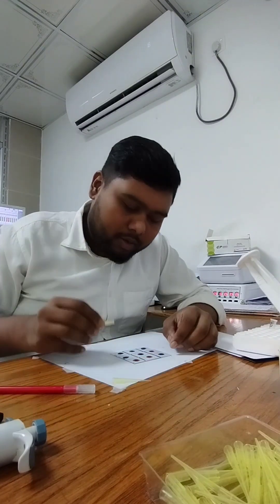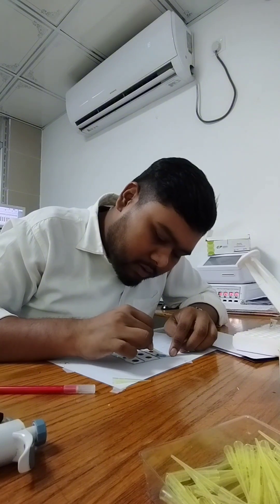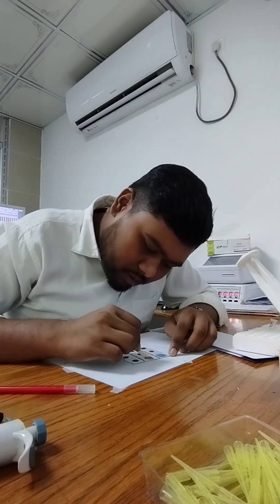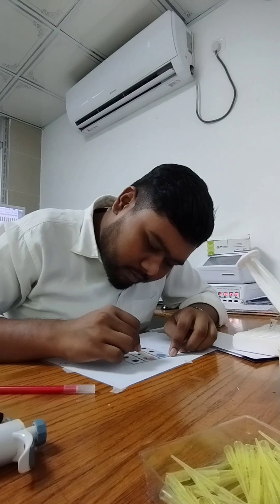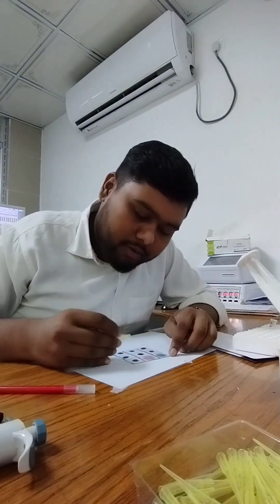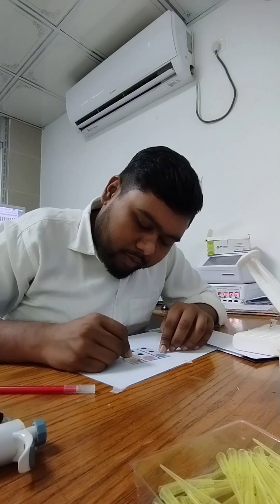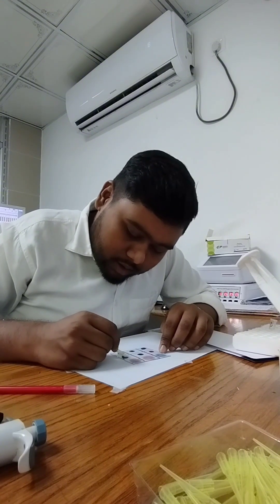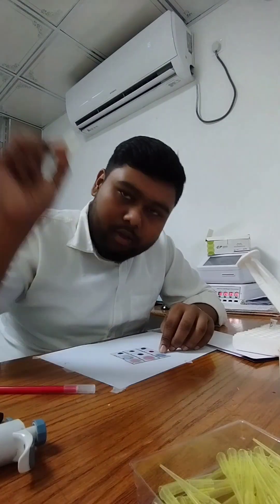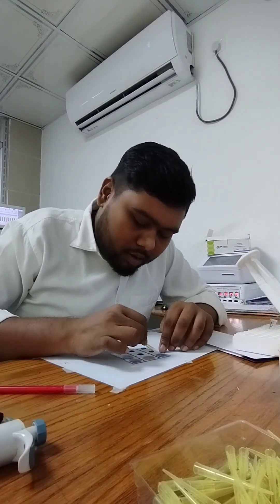So we mix the serum with the antigens — Typhoid, Paratyphoid, Paratyphoid B, B. abortus, B. melitensis — mixing the serum with each. Then place on the rotator for two minutes.